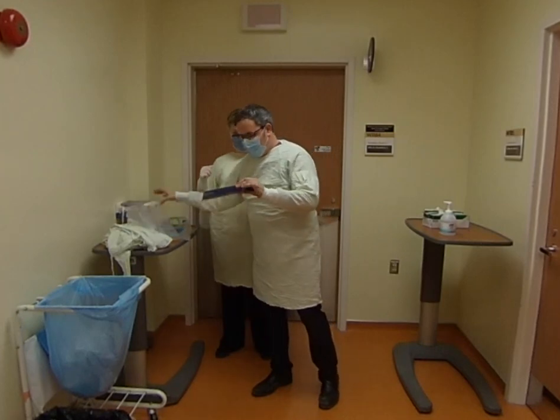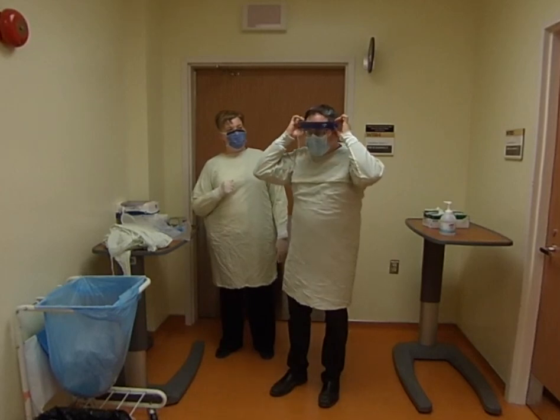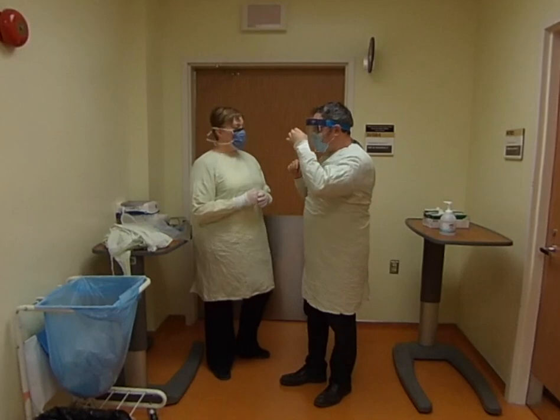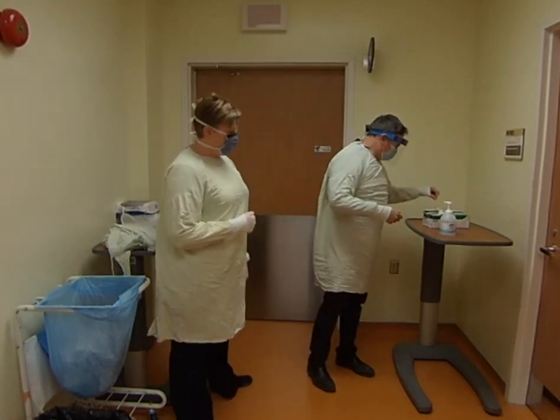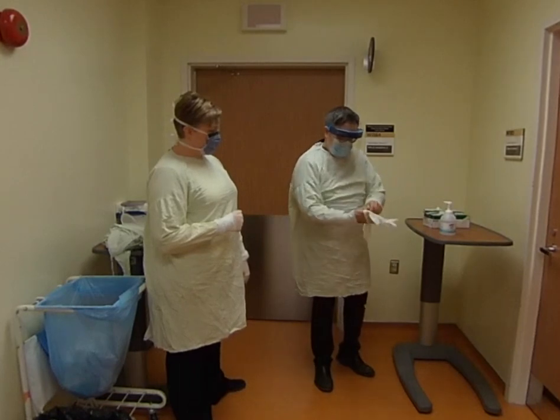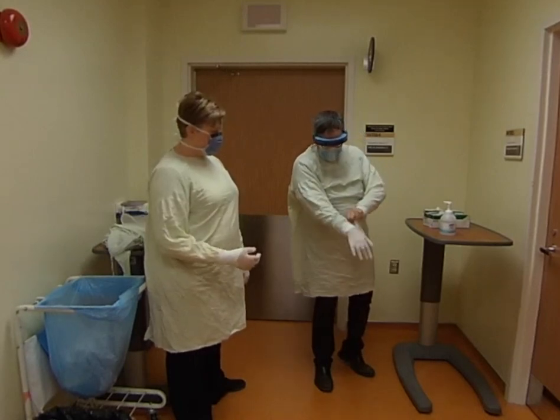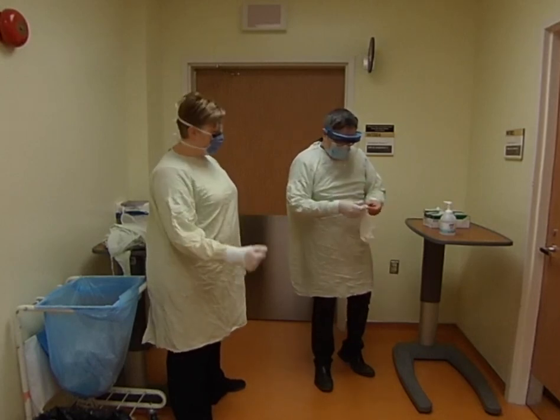The visor has an elastic. I'm going to put it on, and what's really important is that it's not pointing out like a baseball cap. You want to have it just above your eyebrows to cover the mask — that looks good. Next are the gloves. Make sure your cuff is ready to go, then pull the glove over. Notice he's getting his cuff in there nice and covered.